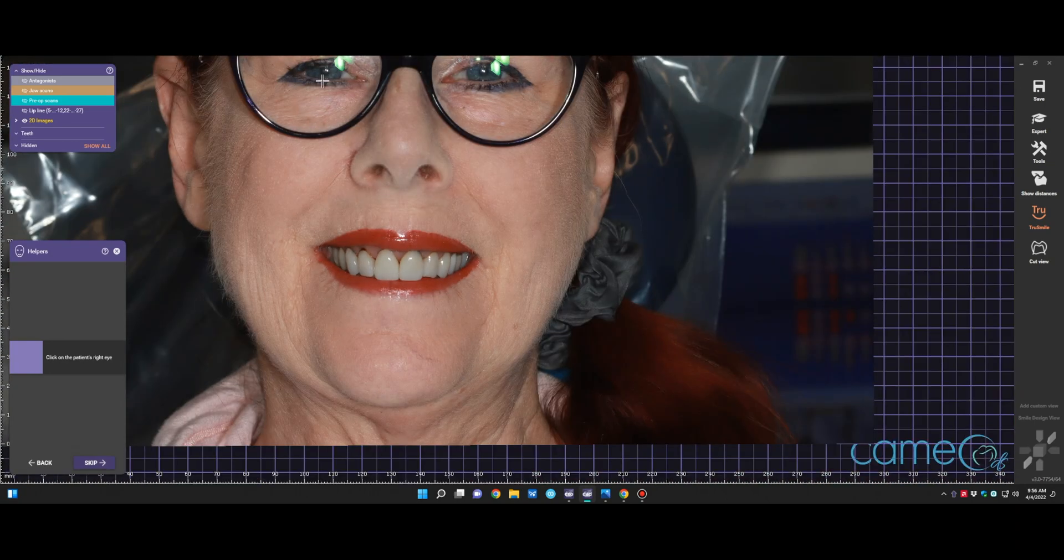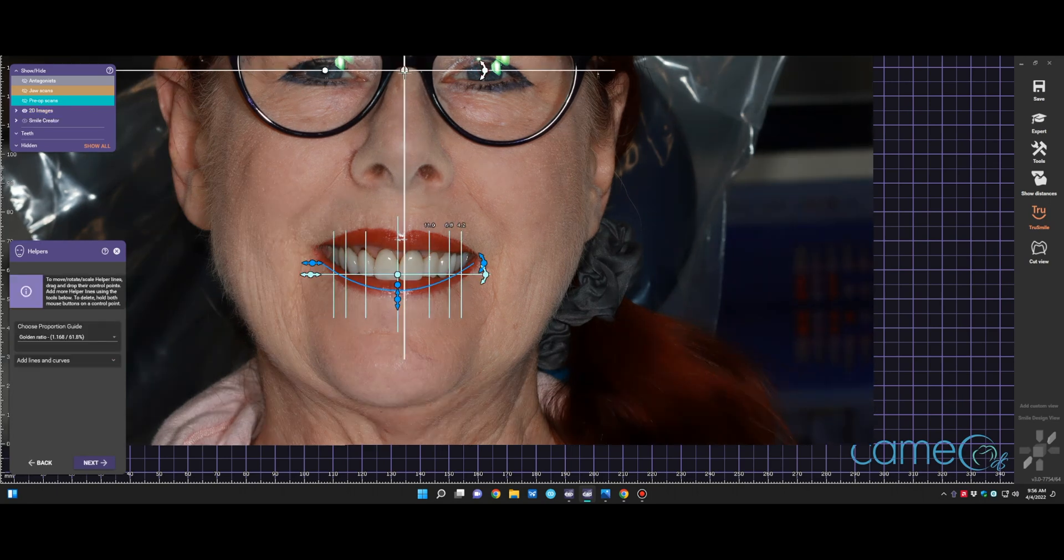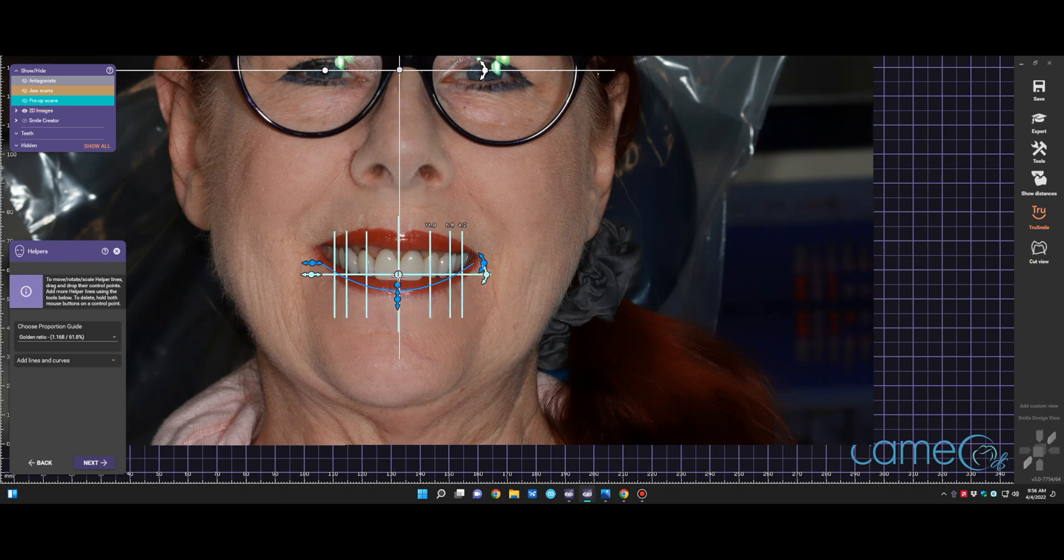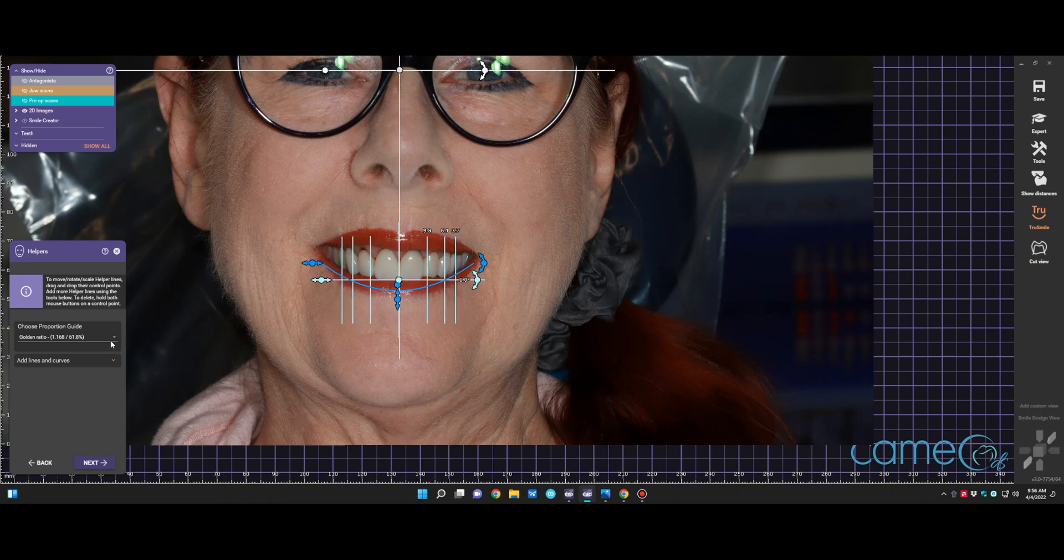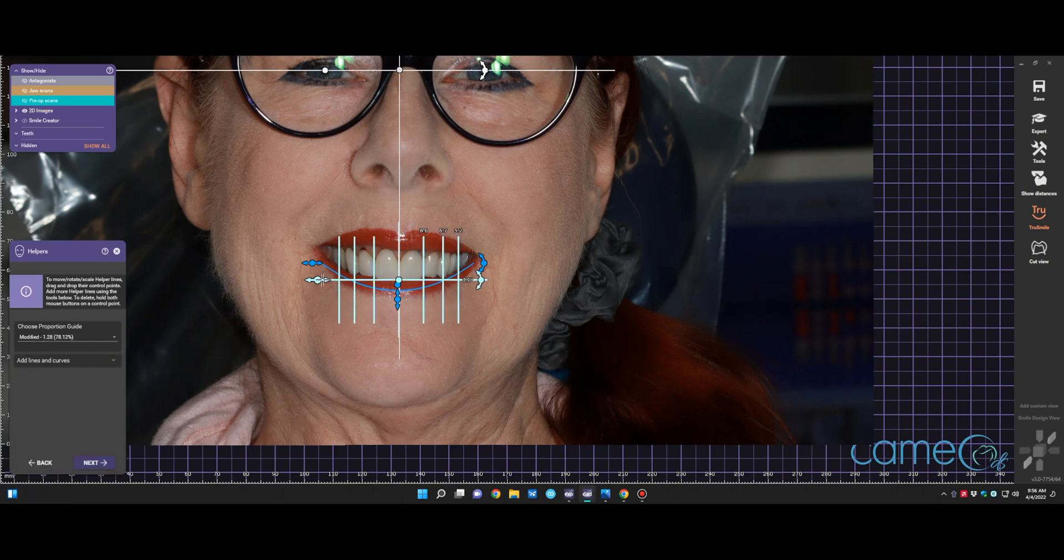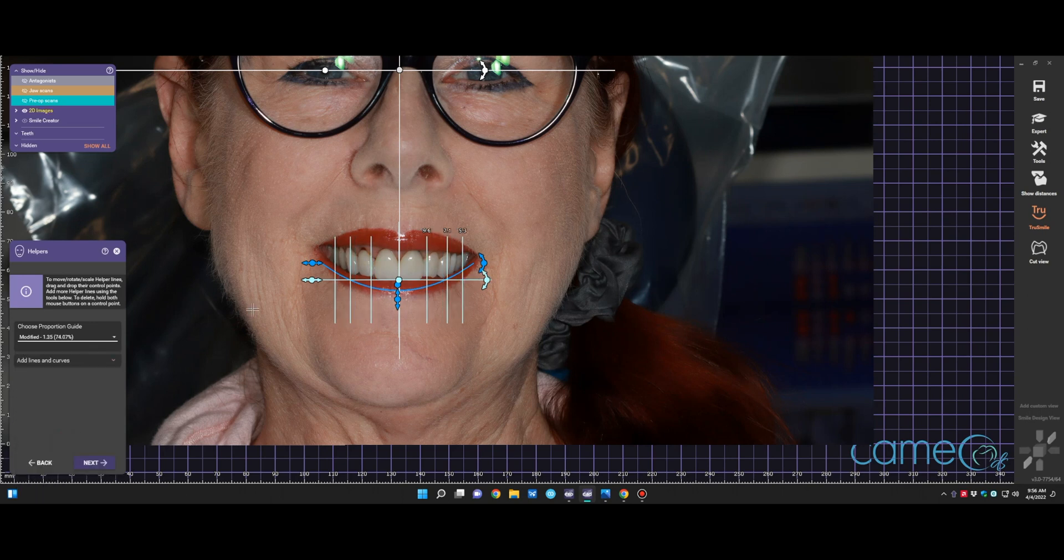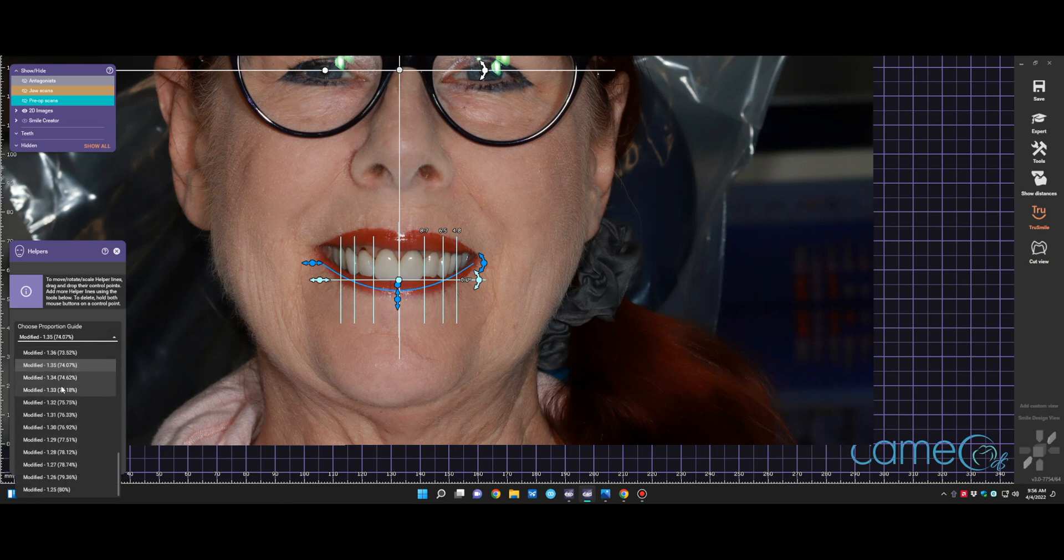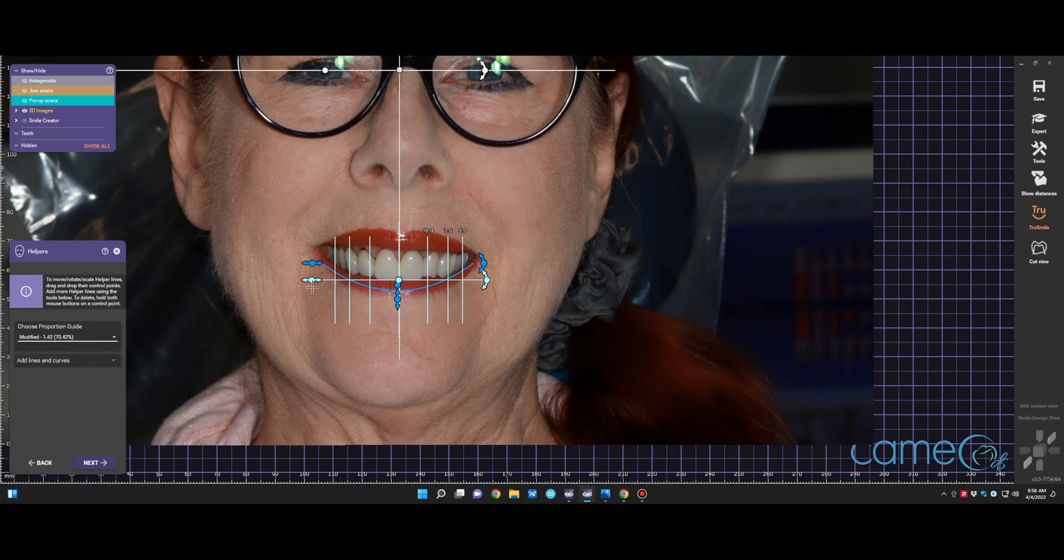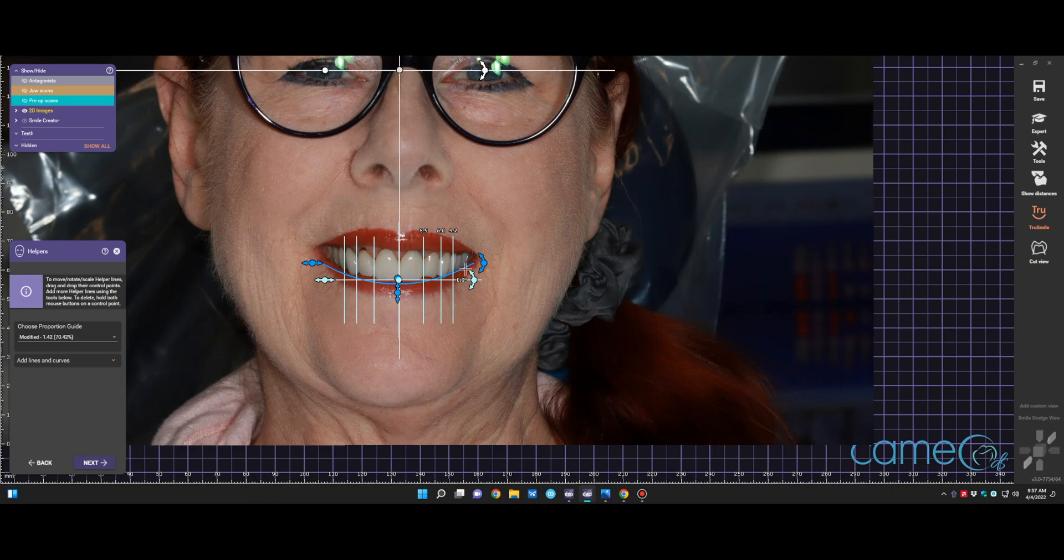At this point, it's going to ask you to identify the center of the pupil of the right eye and the left eye. Once you click on that, you can move the reference lines around. Ultimately, that one that's being manipulated right now is where the incisal edge of the teeth would be. The one vertical is the midline and we're resizing what we feel the size of the teeth need to be. Usually you're anywhere from 70 to 80% in those references. In this case, her two anterior teeth are a little bit larger. So we're trying to find the one that fits that space well. She ultimately likes how her teeth look, just wants them redone because of some aesthetic concerns.